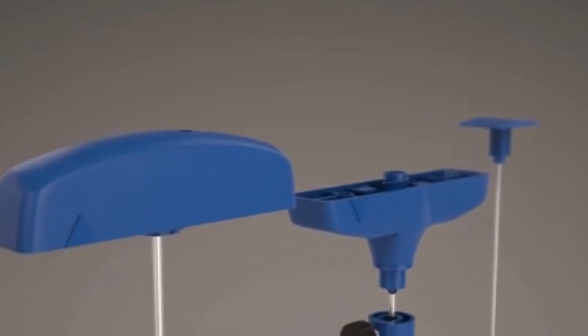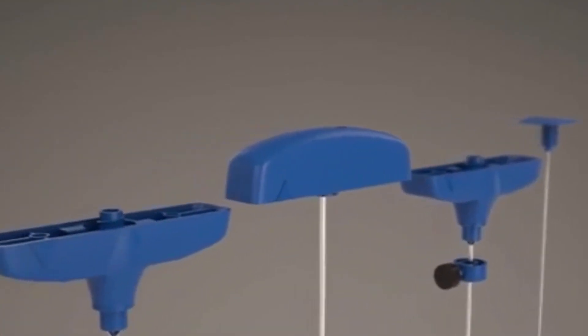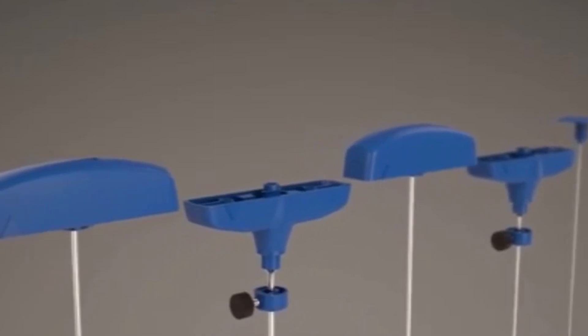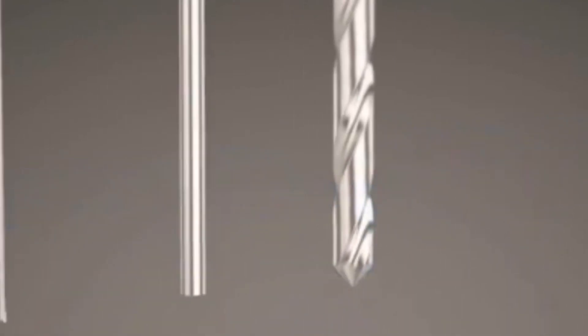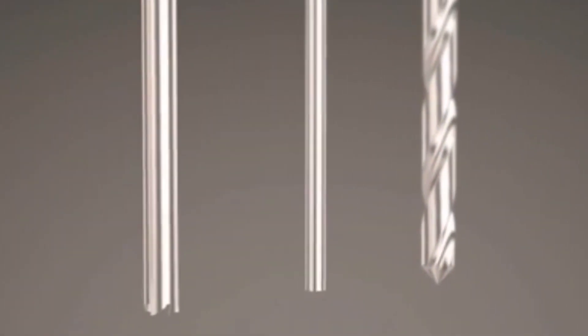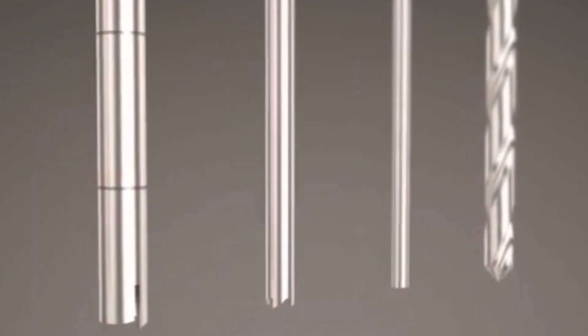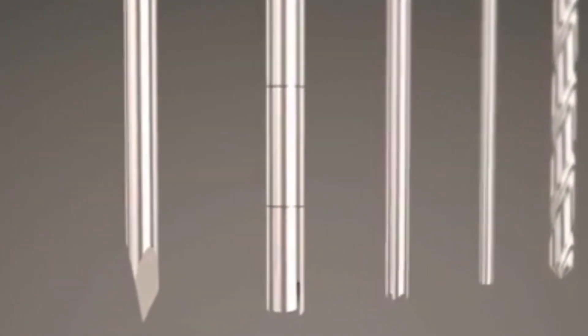Featuring the innovative and clinician-minded design, as well as the unsurpassed durability that Loran Medical Products are renowned for, the Madison Bone Biopsy System saves you time and increases patient comfort while delivering a dependable diagnostic yield.